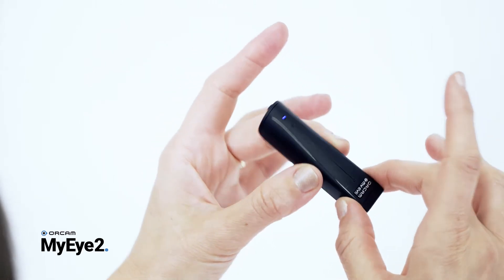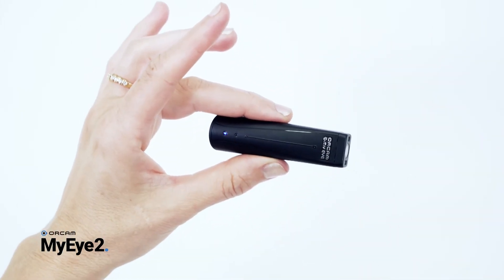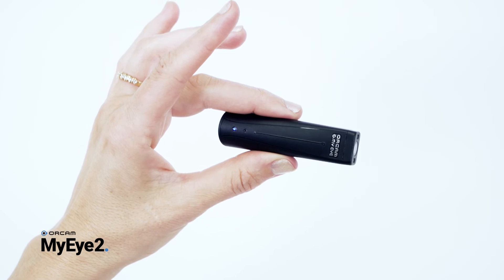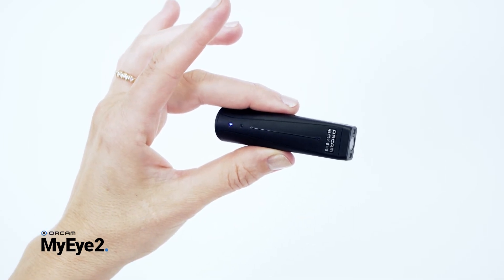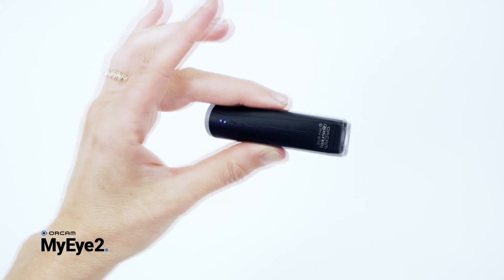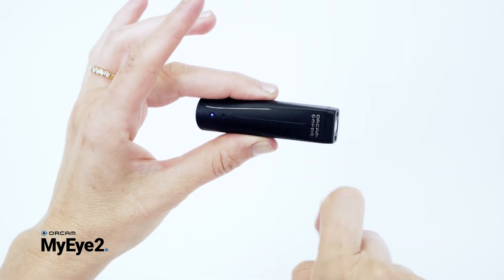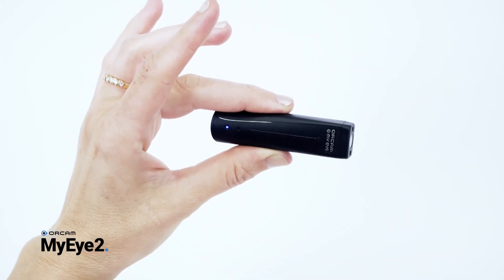Then you will hear: Main menu, reading language menu. Touch to select or swipe for other settings. To go forward in the menu, swipe forward. To go back, swipe backwards.